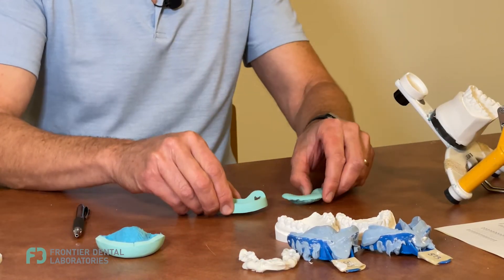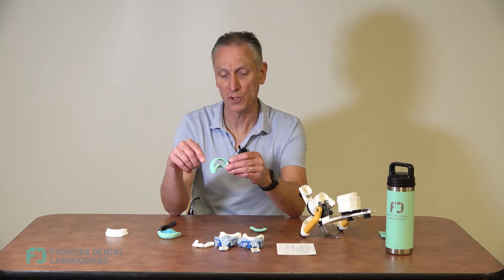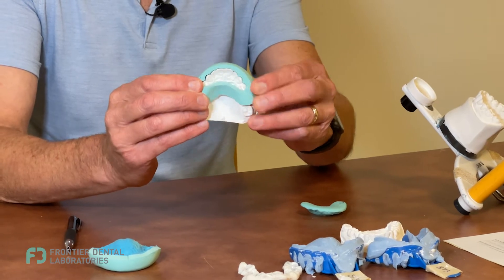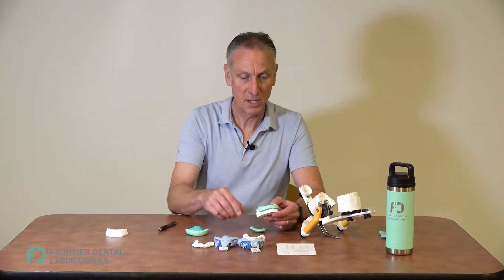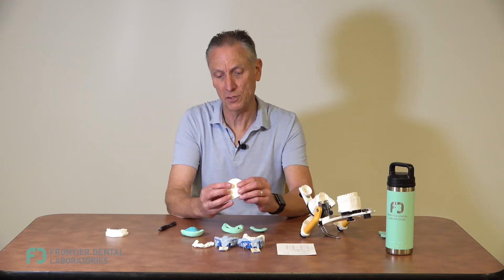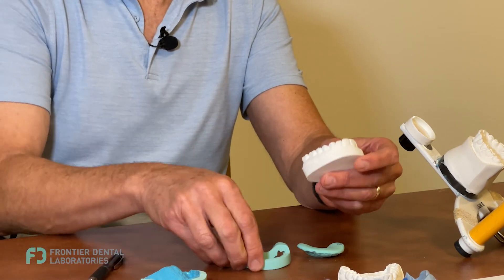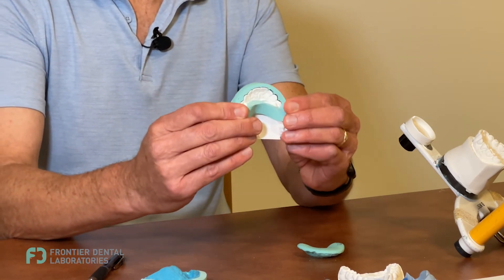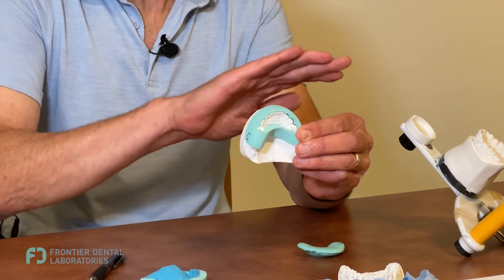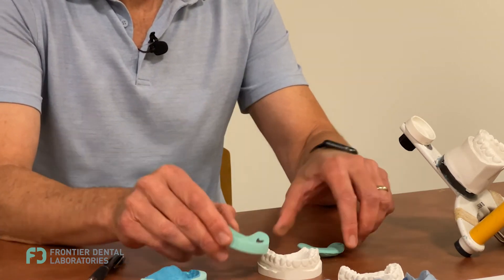These two tools here are not quite understood in terms of how to use them. We've got the prep matrix, which is more for your facial reduction. As you're doing your depth cuts and your reduction — based off the diagnostic design — you need to make sure you reduce enough tooth structure to achieve the design. You'll do your depth cuts, slice through the interproximals, whether you're doing full crowns or veneers, and then put this in and out of the mouth to verify reduction. You want a good eight-tenths to one millimeter of reduction all the way across, including the interproximals.